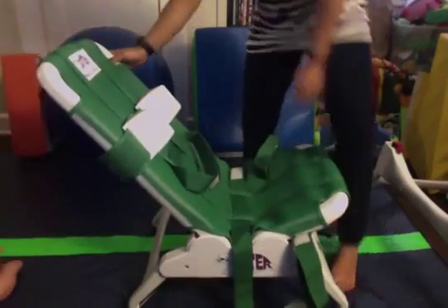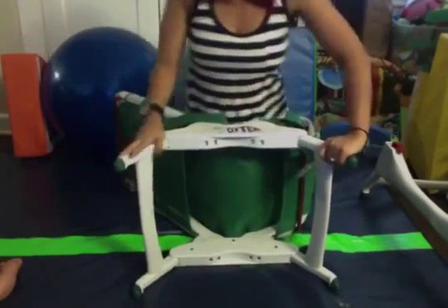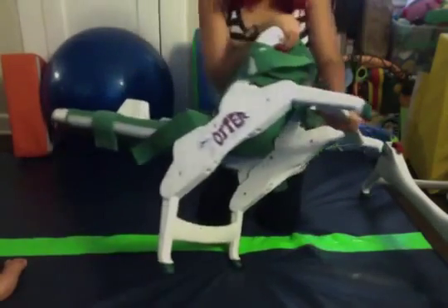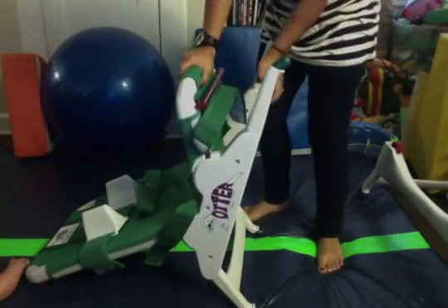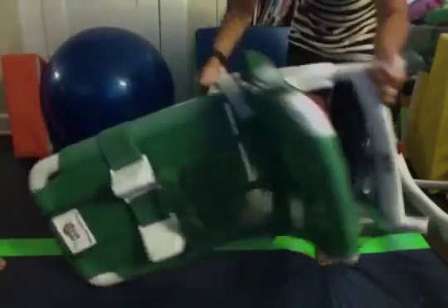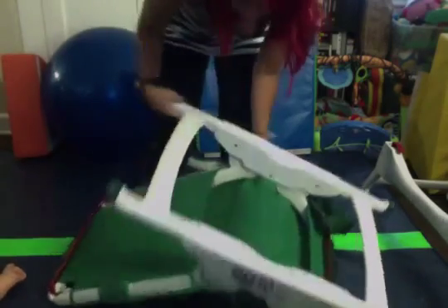Basically all of this part adjusts as well. These legs — you can adjust how high and how low they sit. What you do is pull them out, and it can go all the way out. I'll show you what it looks like when it's flat.